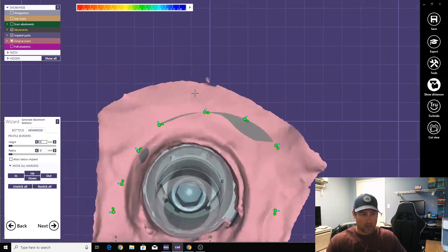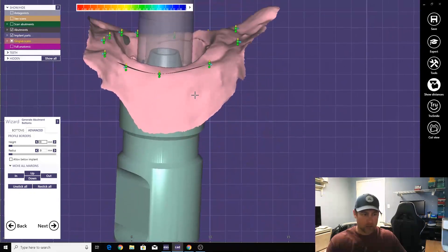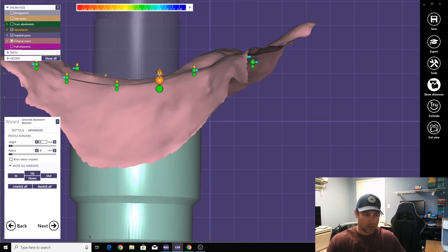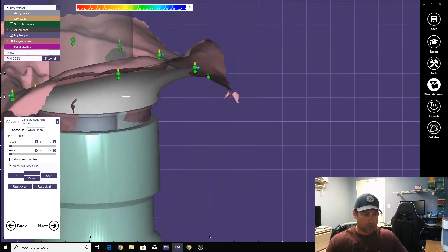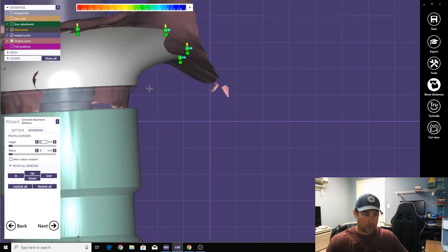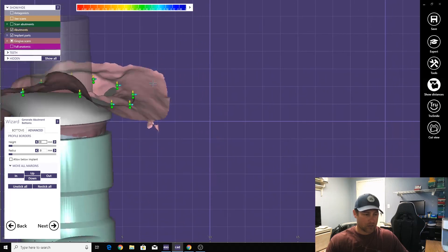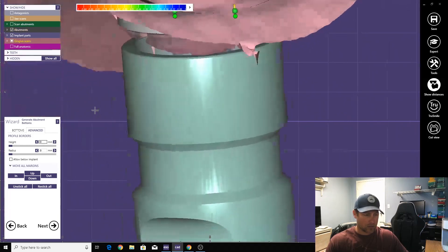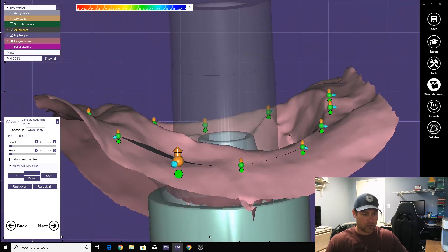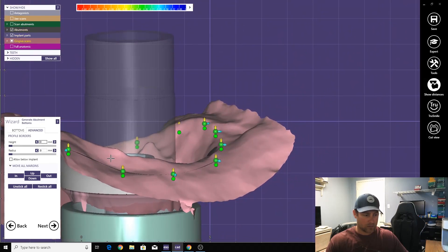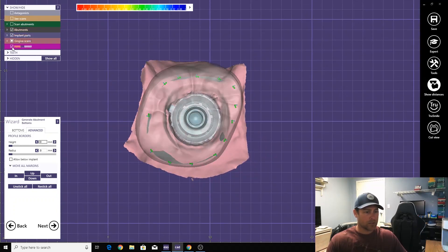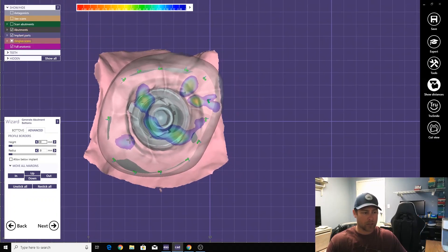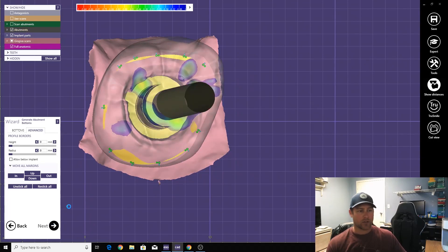Go ahead and fix this. Okay, now let's just check everything on the tissue. Okay, looks pretty good. Bring this one down a hair. That one's good, that one's good. We can bring this up a little bit. This one down. All right, looks pretty good. Put this back, and now the crown will be adapted to this margin that we created.